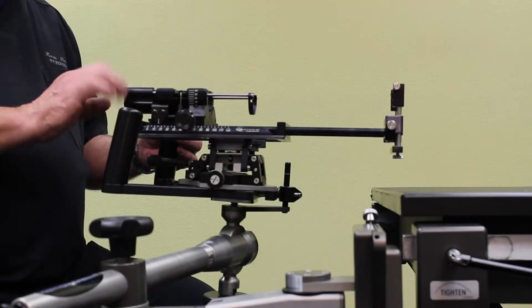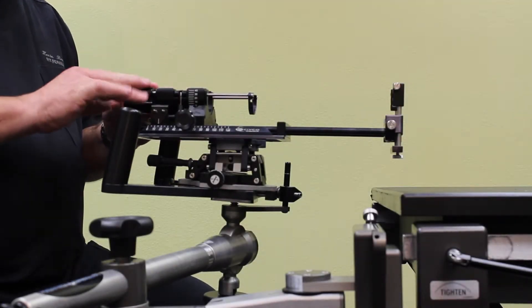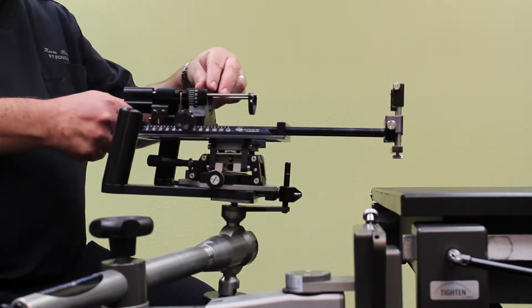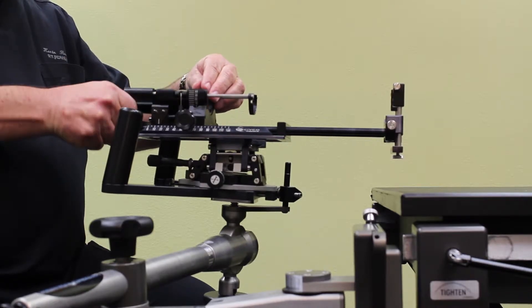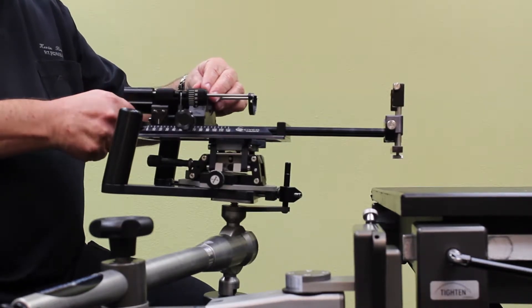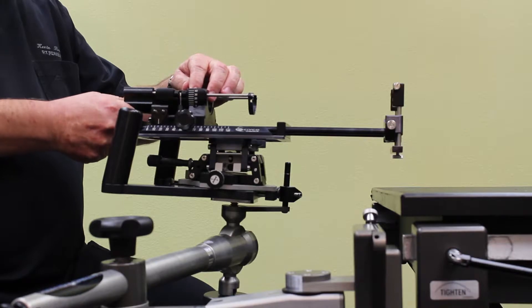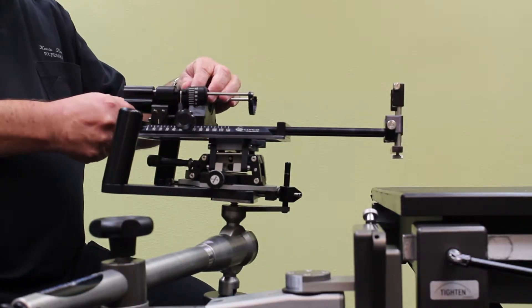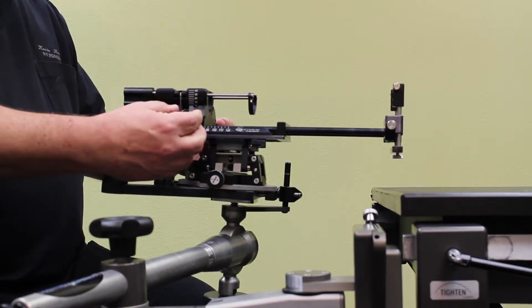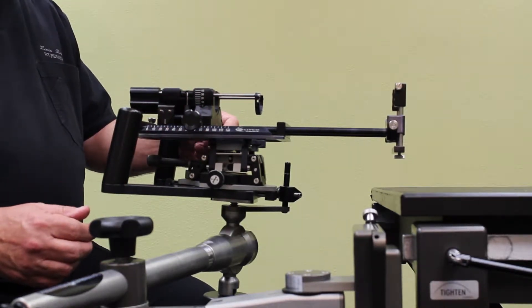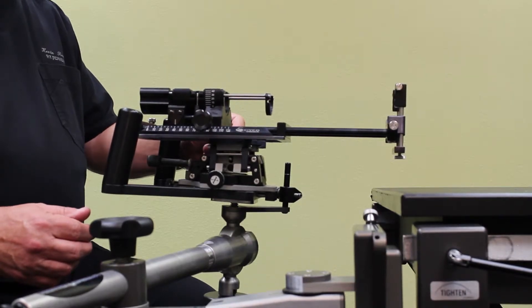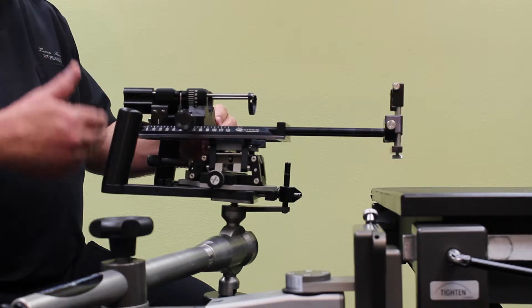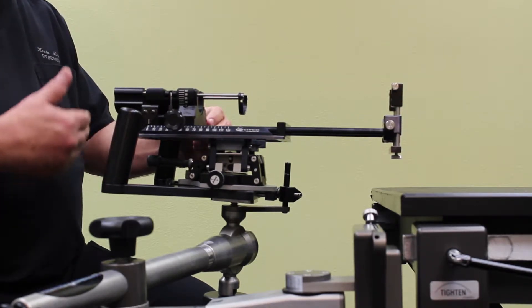Besides the six degrees of freedom, there are a couple of other controls or motions I want you to be aware of as well. The cradle that the probe fits into can rotate this way or that way, and you'll notice there are some degree markers on there to give you an idea of how much of a rotation you're actually putting onto the probe. And then also these knobs that sit on the side of the stepper are what actually help you step the probe into or out of the patient. Each notch, each step, is a five millimeter change.